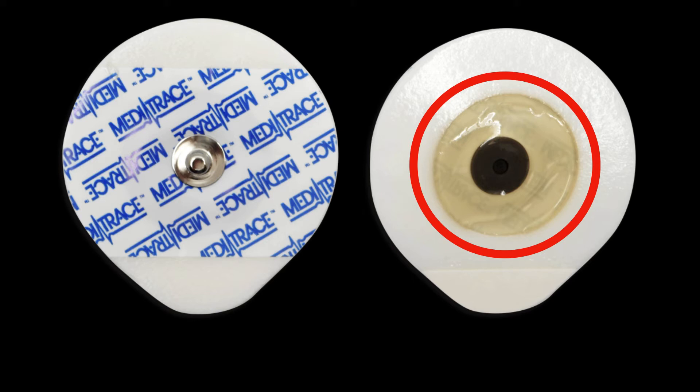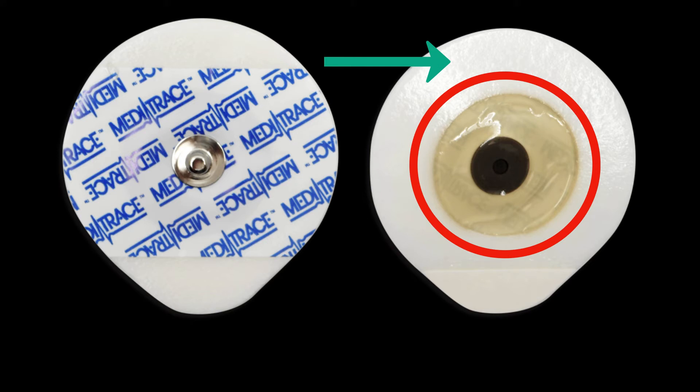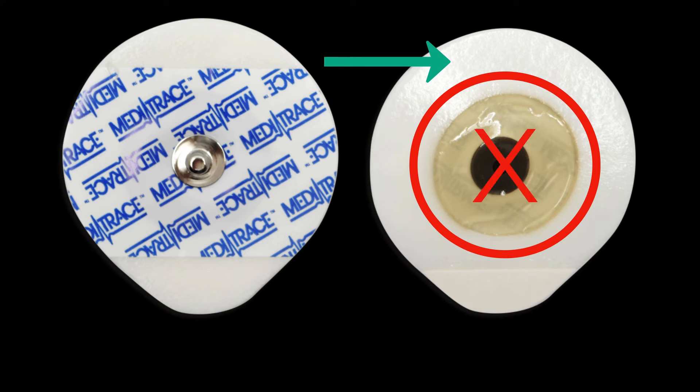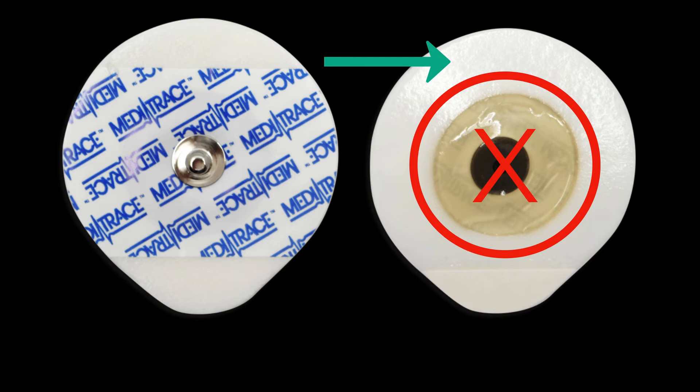Most electrodes designed for field use have phenomenal adhesive, and even if they've been dried out and aren't capable of transmitting electricity, they still stick really well. So the fact that the electrodes stick to the skin isn't a great indication of whether or not you have good conduction. You need good contact to get an accurate tracing.